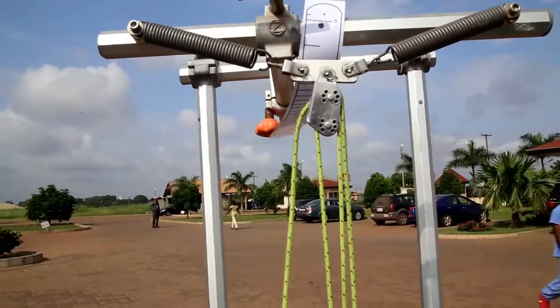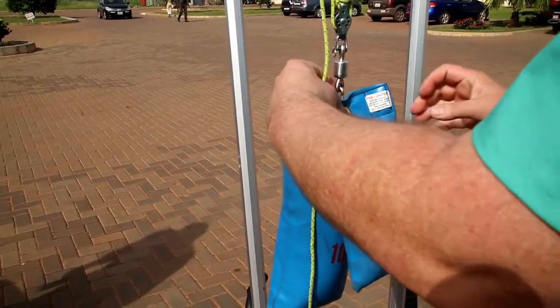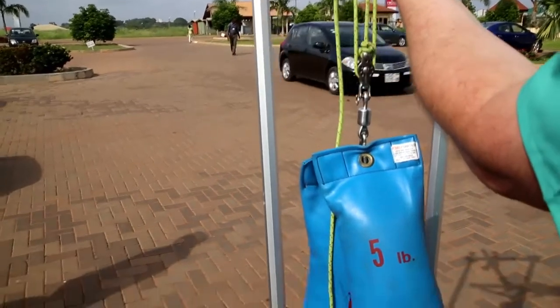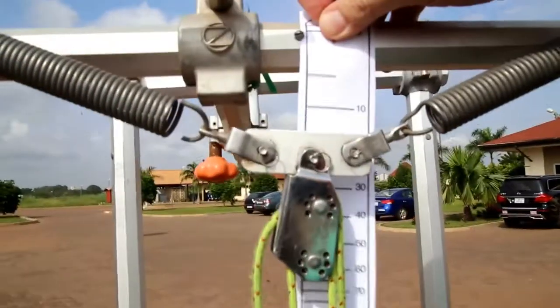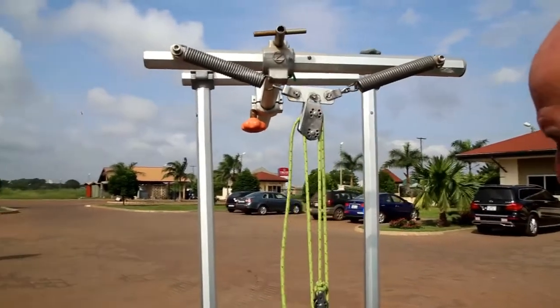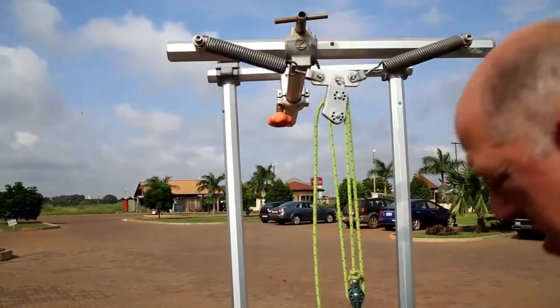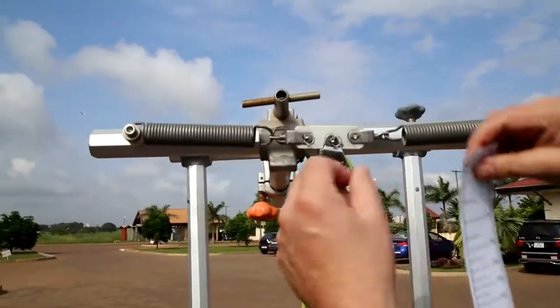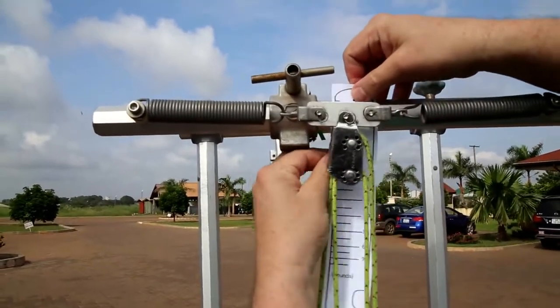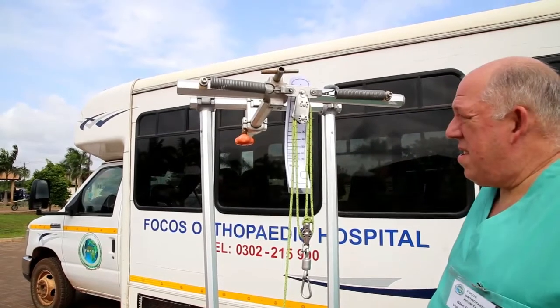If I want to verify further, I can add another five pounds — this gives fifteen pounds. I should be right at the fifteen pound mark, and that's where I am. When I take all these weights off again, it's back in place right at zero. As shown, the system is set up and calibrated.